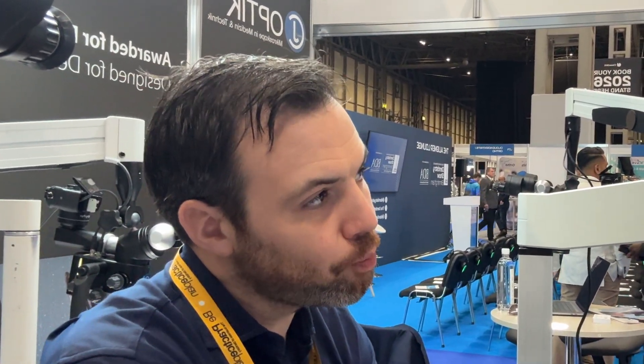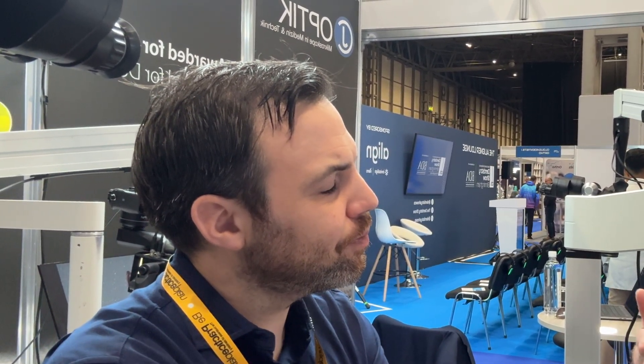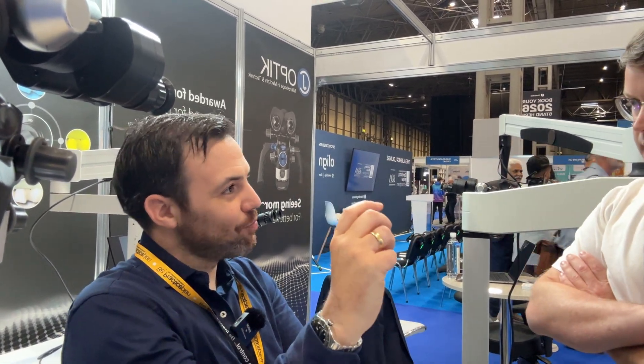That's how you should properly focus a microscope - you put it on the highest magnification, get it in focus, and when you bring it back it should always stay in focus. It will be 100 percent in focus. My microscope doesn't do that - I've tried many times and I thought I was doing it wrong, but I think it's just a downside of my microscope. With all the old microscopes, whenever I show anyone struggling with magnification, I say highest mag first.